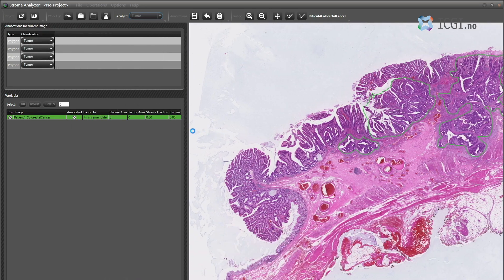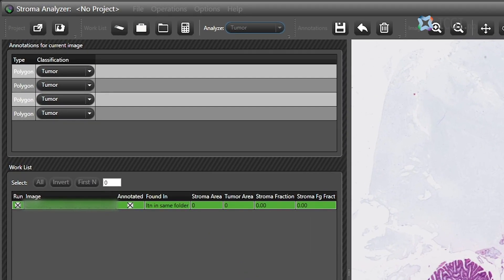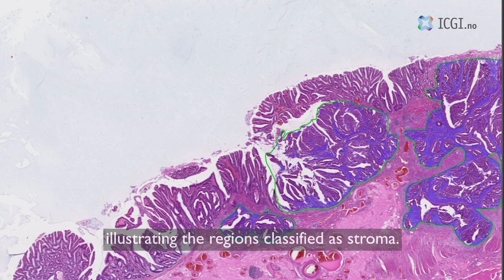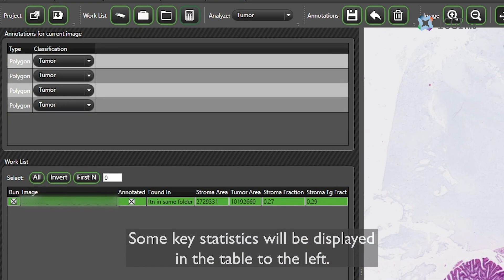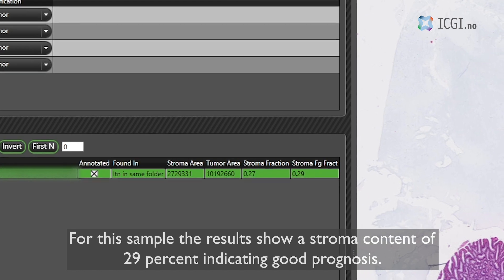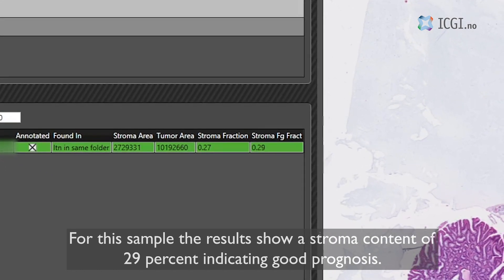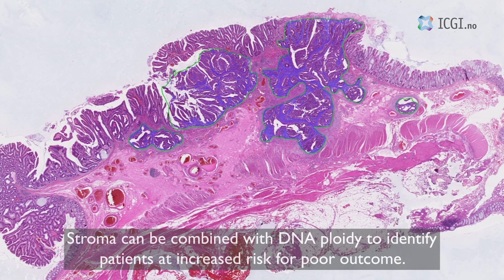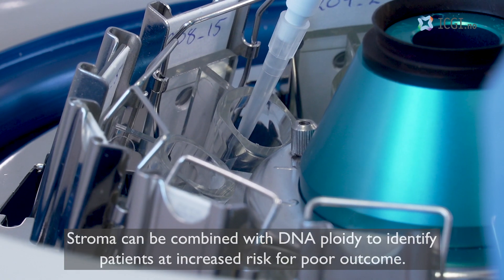When the analysis is done, a blue mask is drawn over the image illustrating the regions classified as stroma. Some key statistics will be displayed in the table to the left. For this sample, the results show a stroma content of 29%, indicating good prognosis.